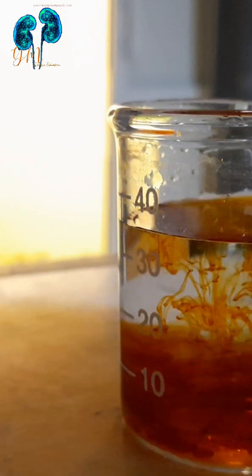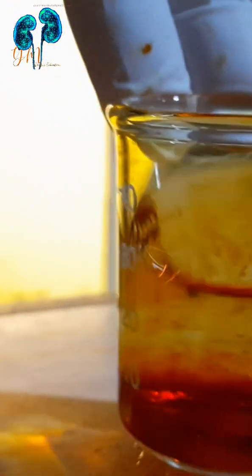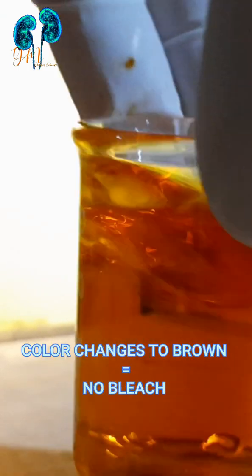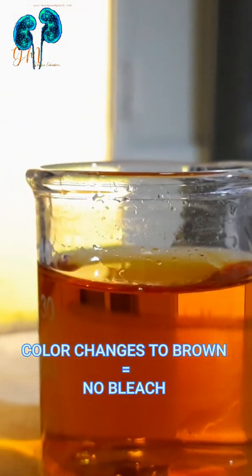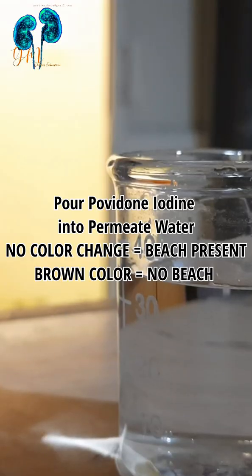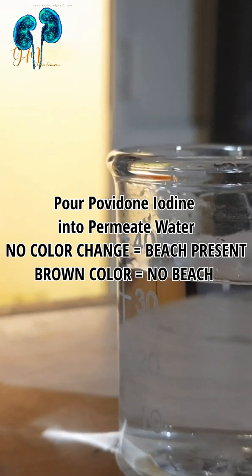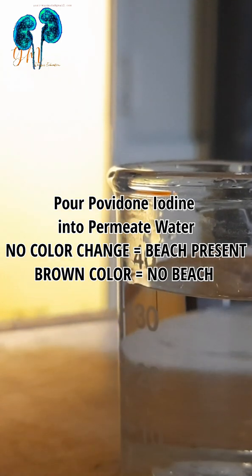So once again, after loop disinfection, collect water and pour povidone-iodine. If there is no color change, that indicates the presence of residual chemical. If the color turns brown, that indicates there is no residual chemical and it is good water.